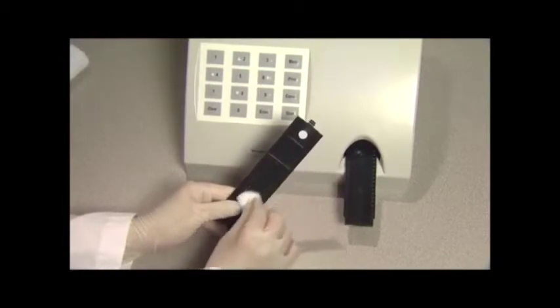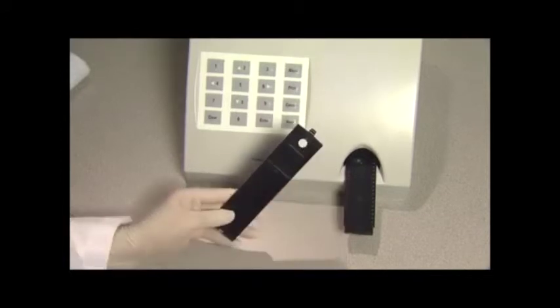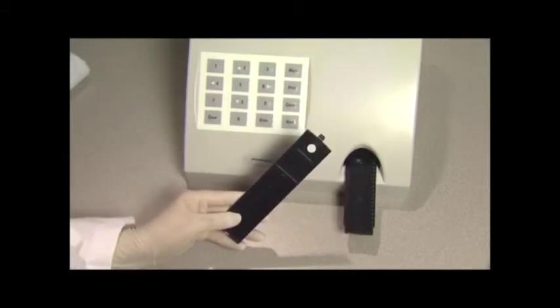Then dry with a clean dry cotton ball. Make sure to examine the white calibration circle to ensure that there are no nicks or dirt present.